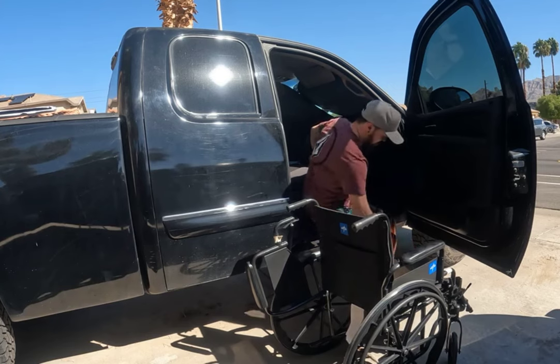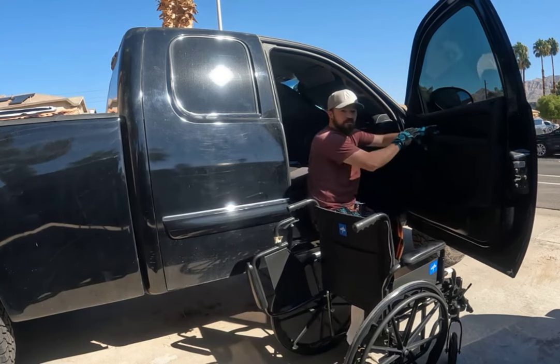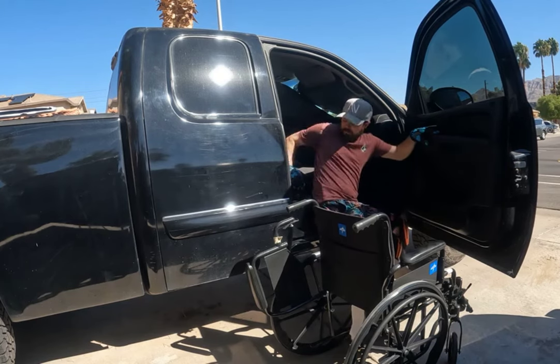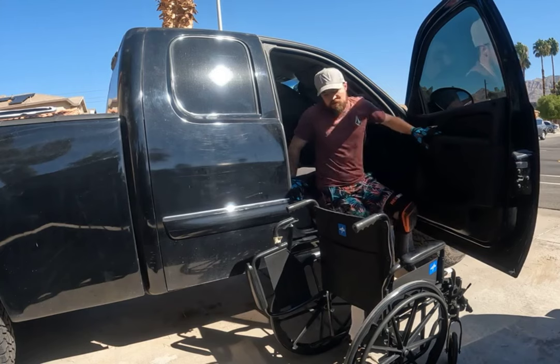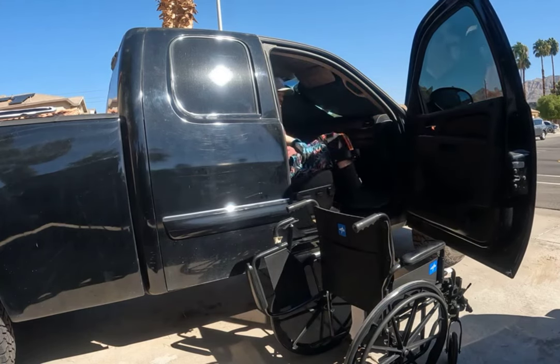I start coming up to the chair and grab the slide board handle. Now I'm up as high as I can get — I brace myself on the door. These hinges are rated for about 2,000 pounds, so you're not going to hurt it. I reach back, grab the seat, and just lift myself up and into the truck just like that.